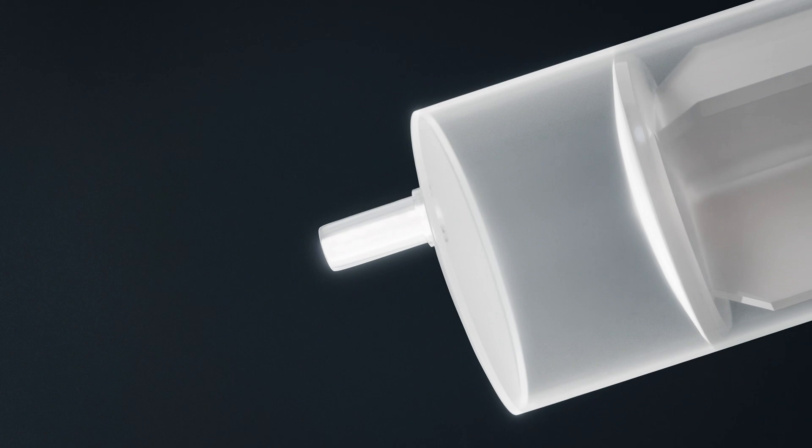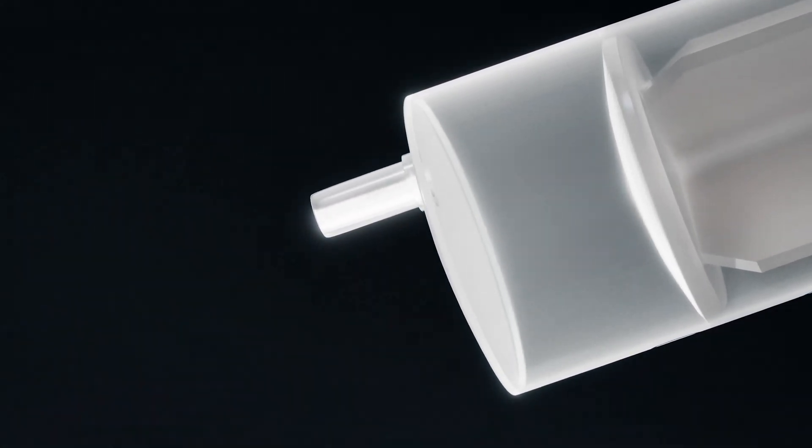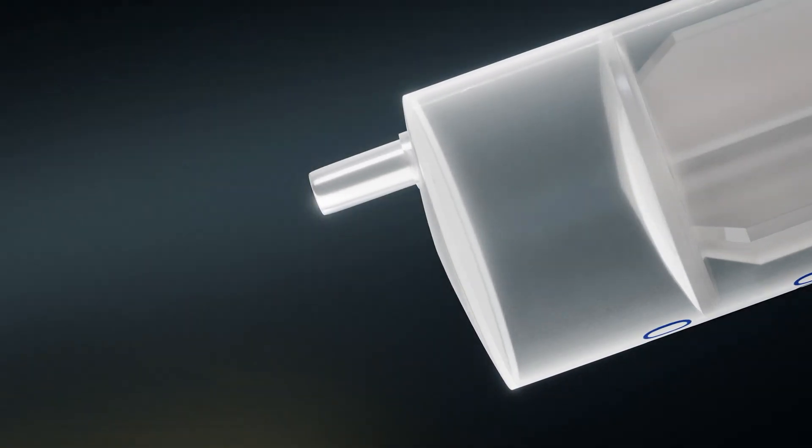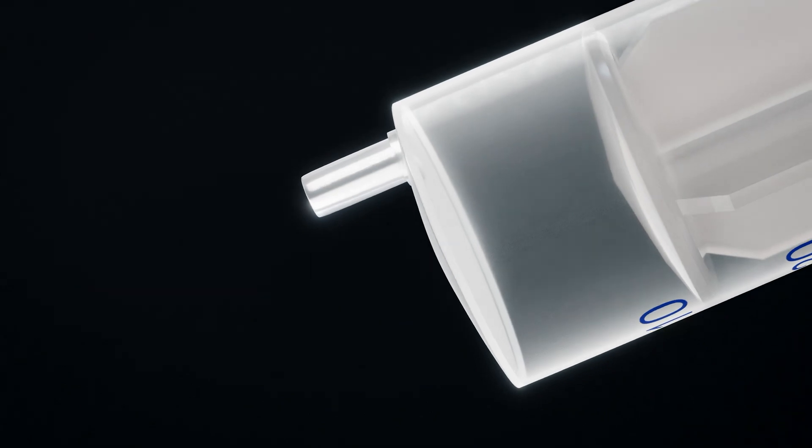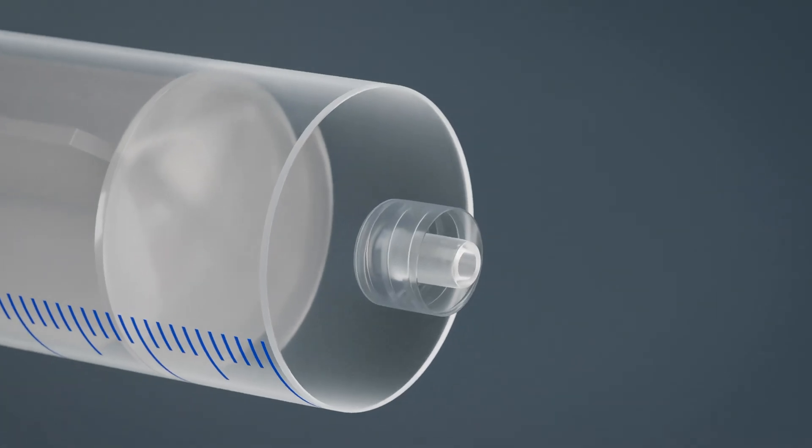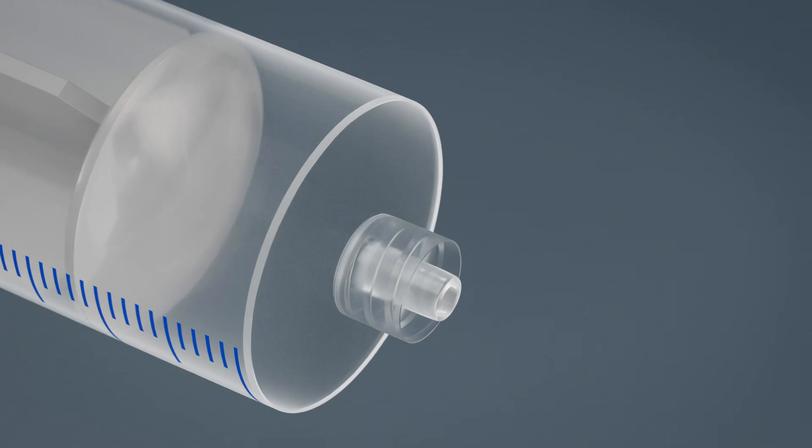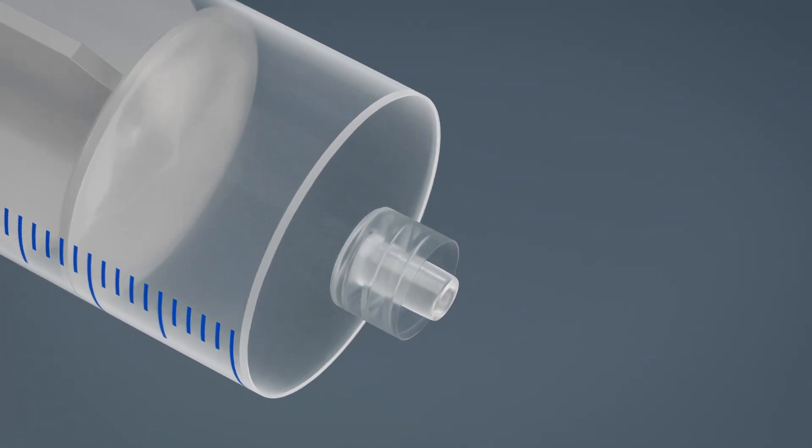These new syringes are available in both luer slip and luer lock variations. The AMS-50 features an eccentric luer slip tip, while the AML-50 possesses a centric luer lock tip, making it easy to securely attach your needle size of choice.